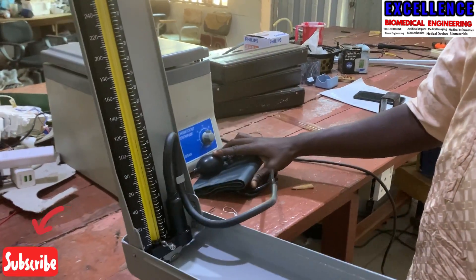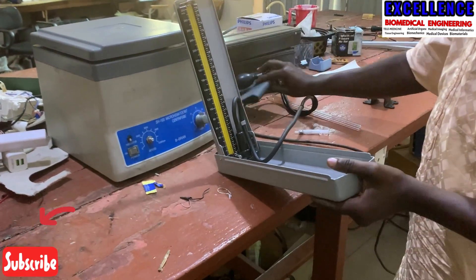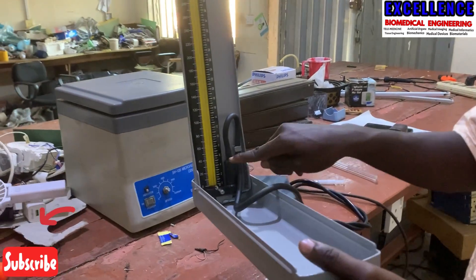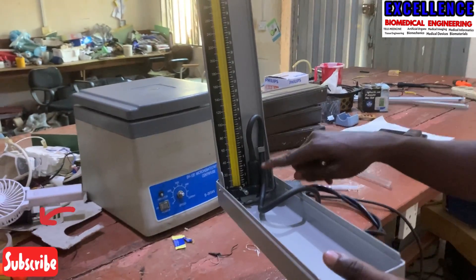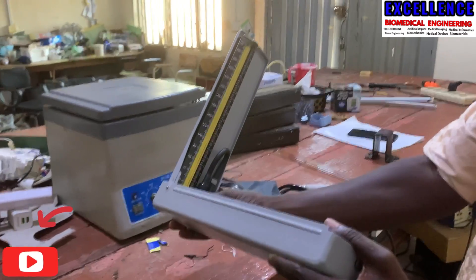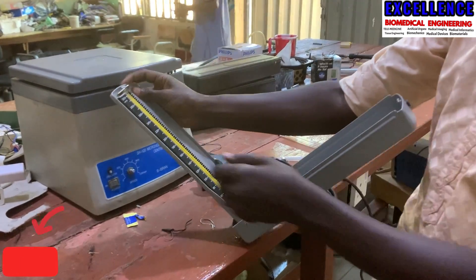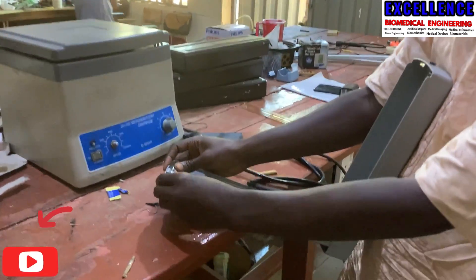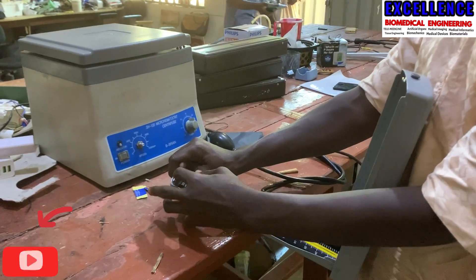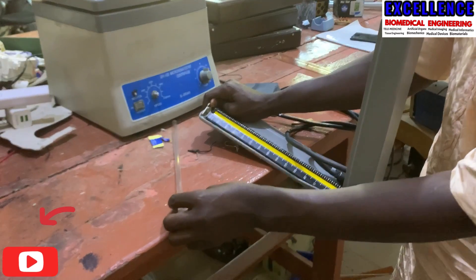What we do now is put it in a position suitable for removing the glass rod. In our case here we already have a glass rod but it is empty. First, that is the tank — the mercury reservoir. We tilt it and drain off the tank in case there is any remaining mercury. We tilt it down and then use your two thumbs to uplift the lock.